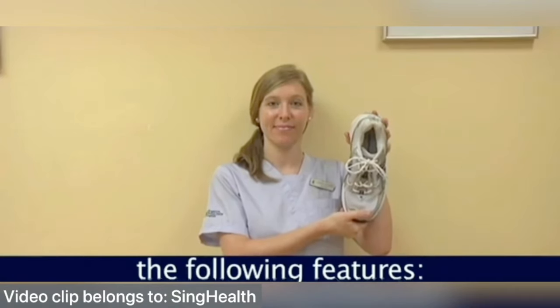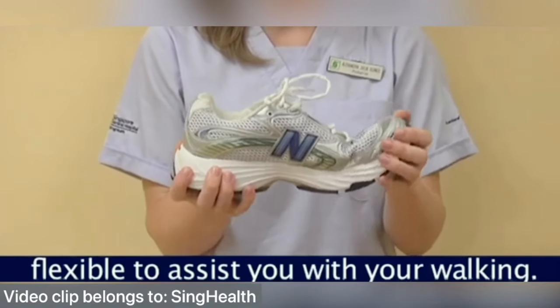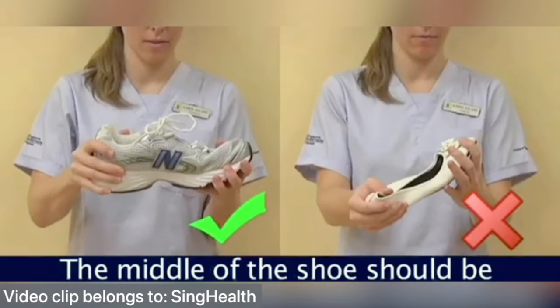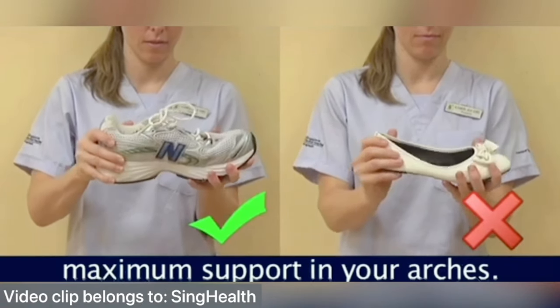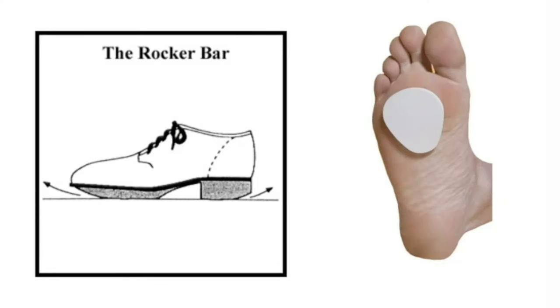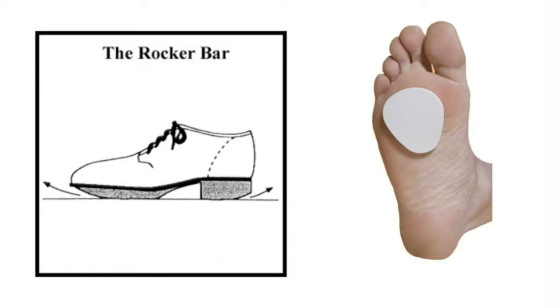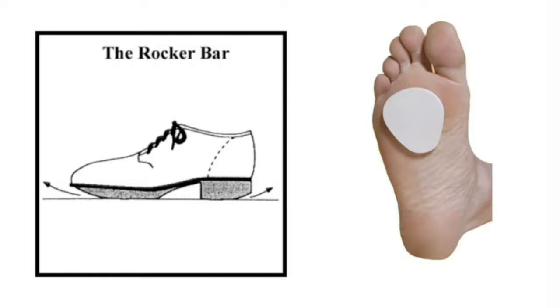A good pair of shoes should have the following features: the front of your shoes should be flexible to assist with walking; the middle should be rigid enough to give maximum support in your arches; and most importantly, there should be external modifications like a rocker bar and metatarsal pad to facilitate push-off in walking and decrease pressure on the ball of your toes. The patient must also learn proper care and maintenance of the orthosis by disinfecting it using alcohol or soap and water to keep it free from bacteria.